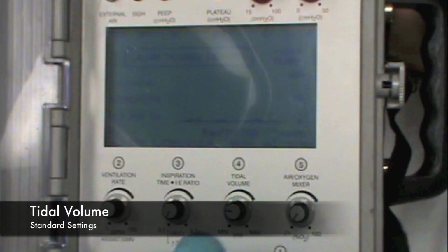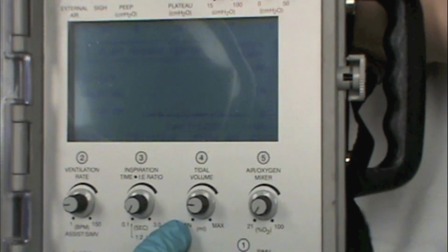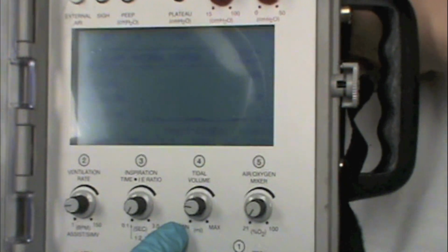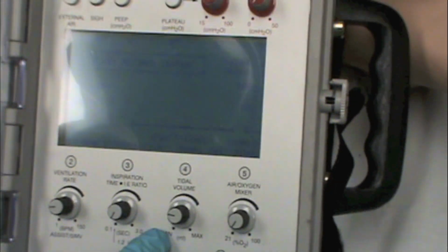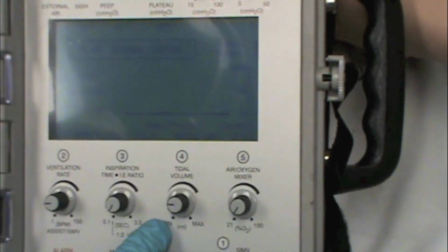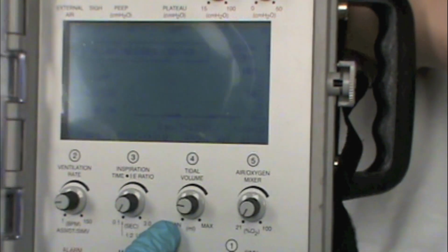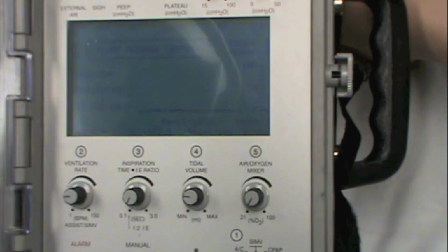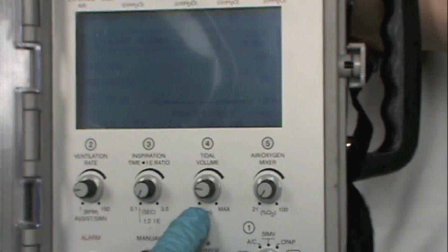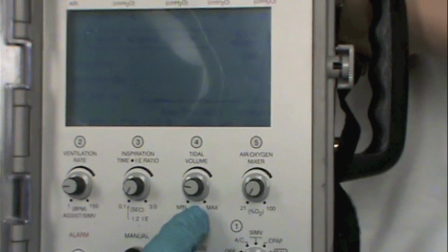So tidal volume, in general, you should set a tidal volume of about 6 cc's per kilogram of the patient's ideal body weight. If you're transporting a bariatric patient and they weigh 700 pounds, you should not take that kilograms of weight and multiply times 6. You should take what their ideal body weight should be and realize that a patient that obese, you may have to adjust a little bit more volume than their ideal to get their chest wall to really move. But the standard size adult, 6 cc's per kilogram of their ideal body weight is how we set their tidal volume.